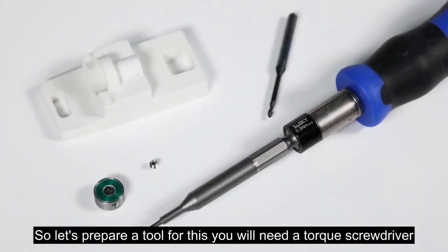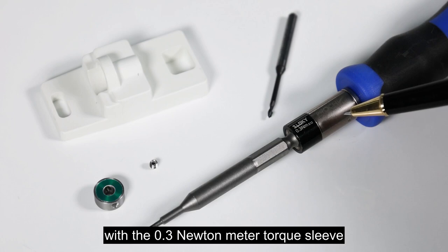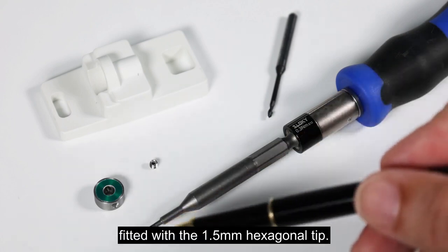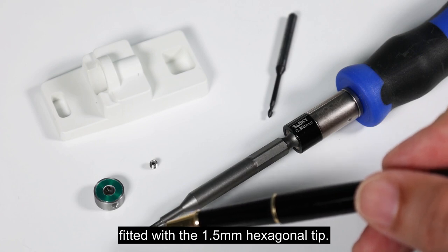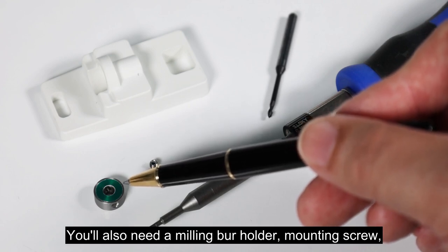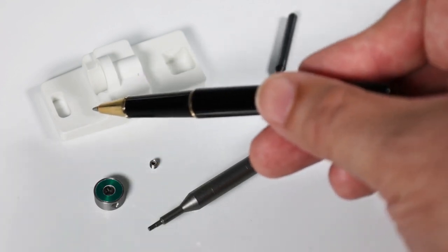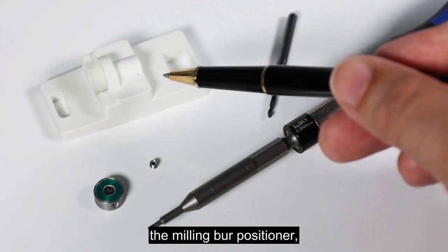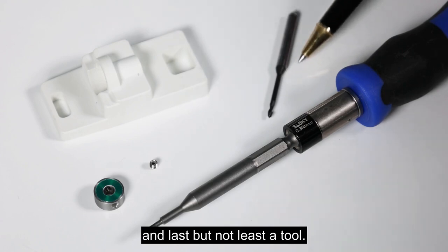So let's prepare a tool. For this you will need a torque screwdriver with the 0.3 Newton meter torque sleeve fitted with the 1.5mm hexagonal tip. You'll also need a milling burr holder, mounting screw, the milling burr positioner, and last but not least, a tool.